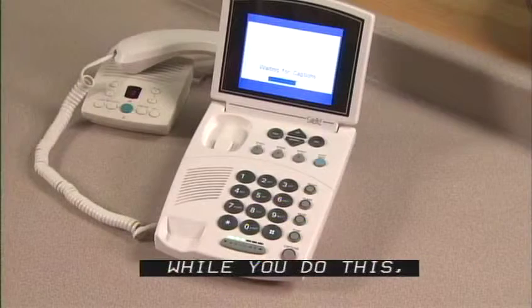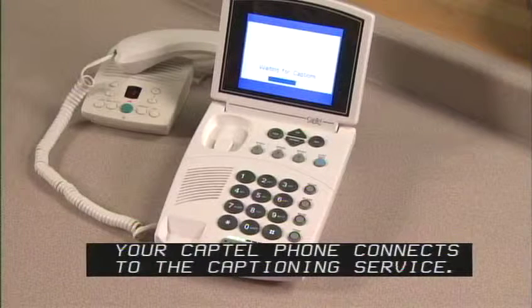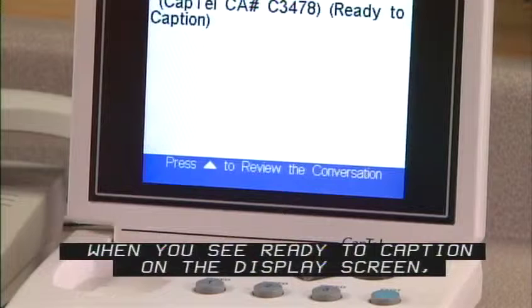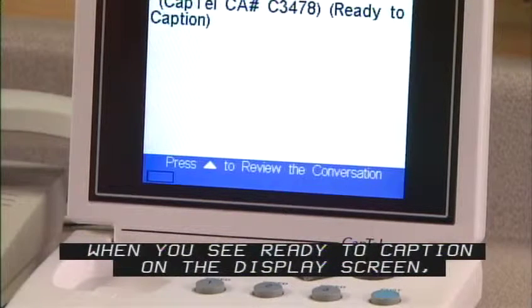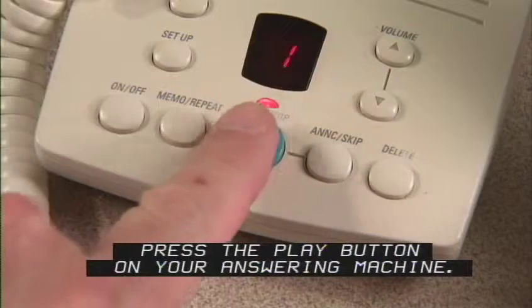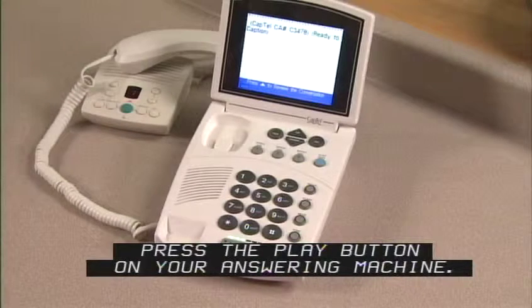While you do this, your CapTel phone connects to the captioning service. When you see Ready to Caption on the display screen, press the Play button on your answering machine.